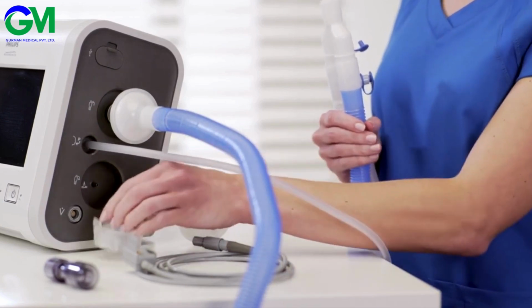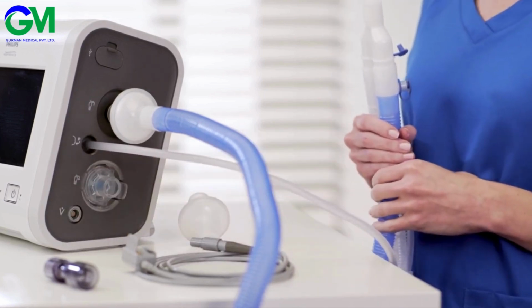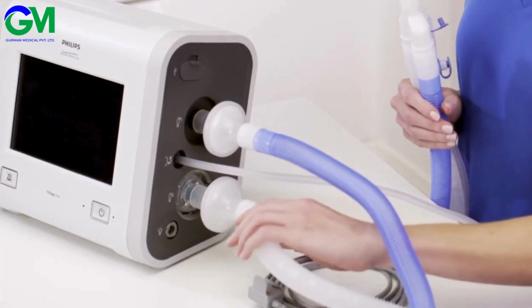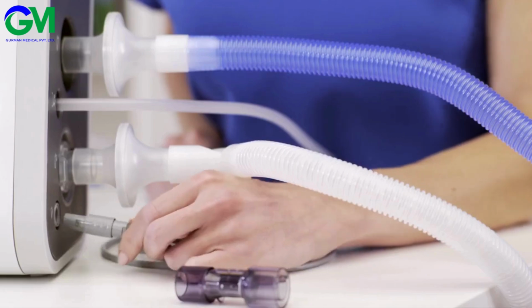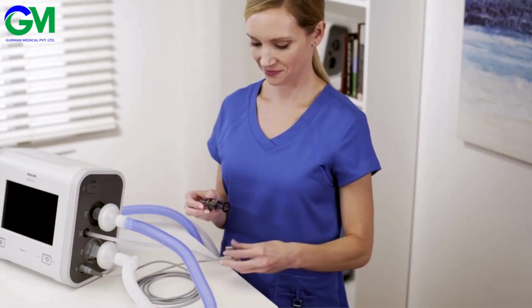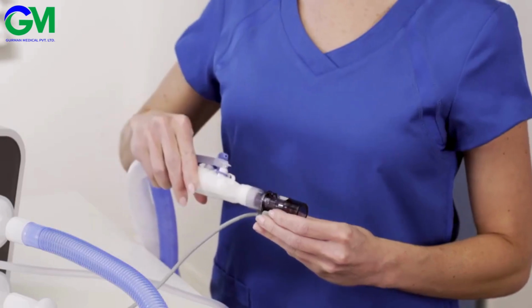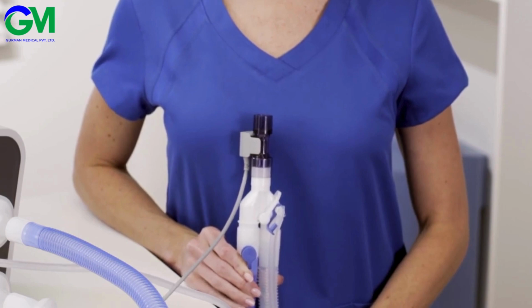Now insert the dual limb AEV into the exhalation valve connection until both sides click into place. Then attach the bacterial filter end of the clear or white limb into the AEV. Attach the flow sensor cable into the connector. Next, attach the appropriate flow sensor, adult, pediatric, or infant, to the cable and clip shut. To complete the circuit, attach the flow sensor to the Y-shaped connector. The dual limb circuit is now complete.